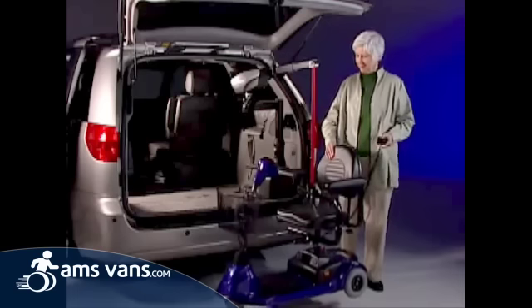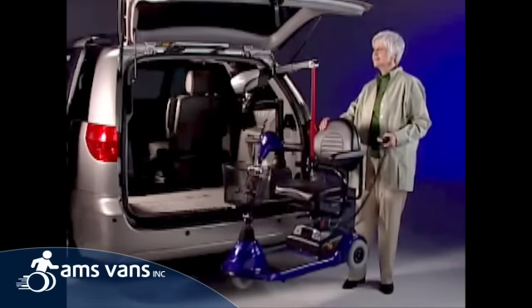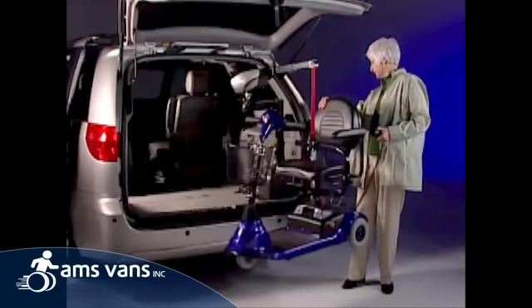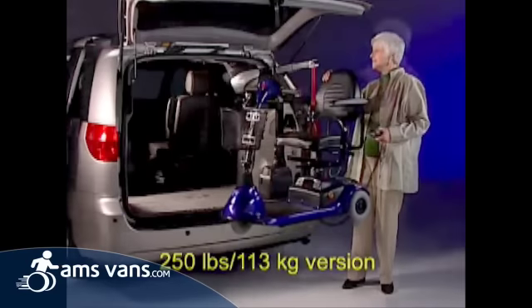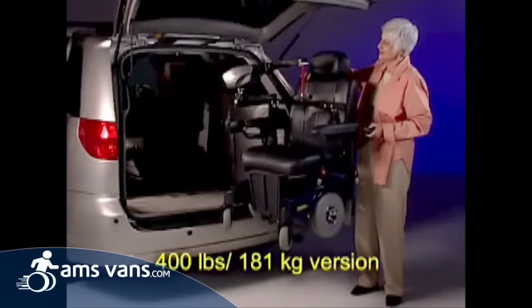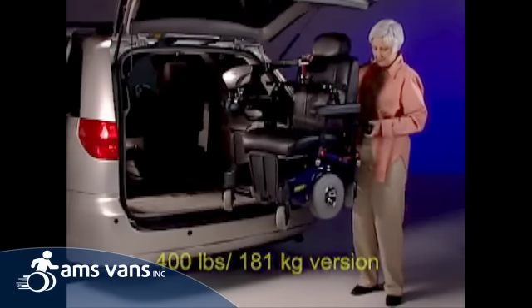When you're ready to use your Curbsider, the modularity has simplified eight models of the C-Arm down to two, with maximum weight capacities of 250 pounds and 400 pounds, or 113 and 181 kilograms.